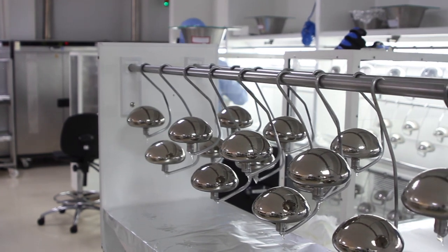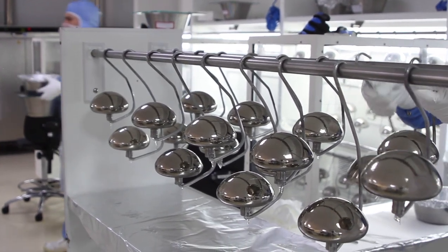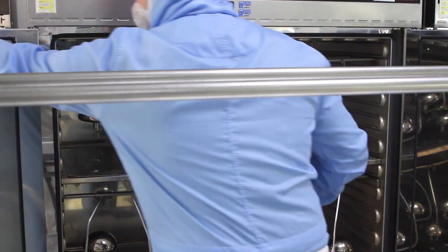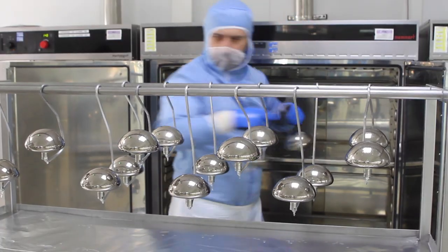And between those different layers, we are putting those shells with mold in oven so that we are curing everything to make the final shell product.